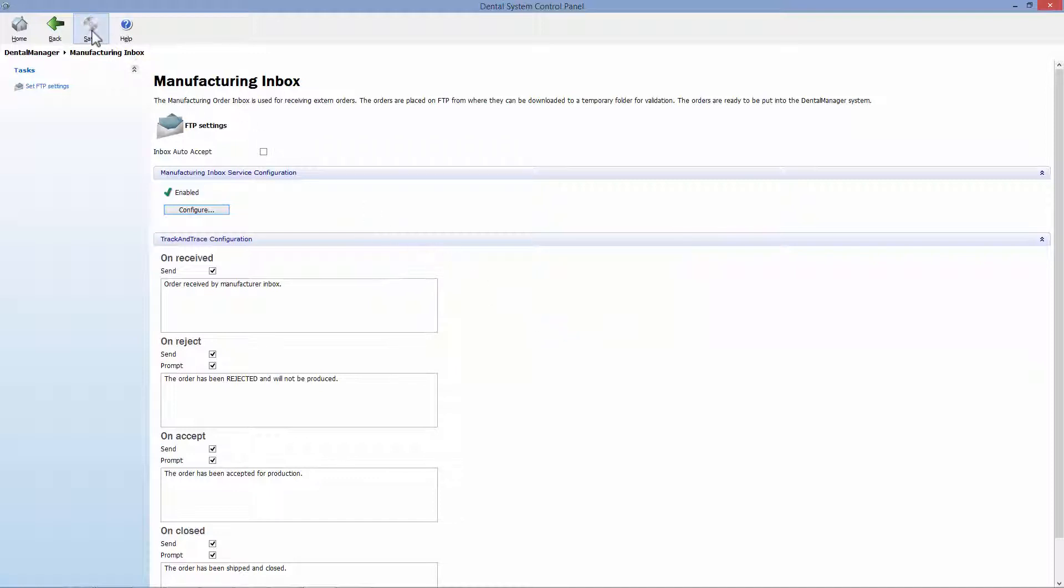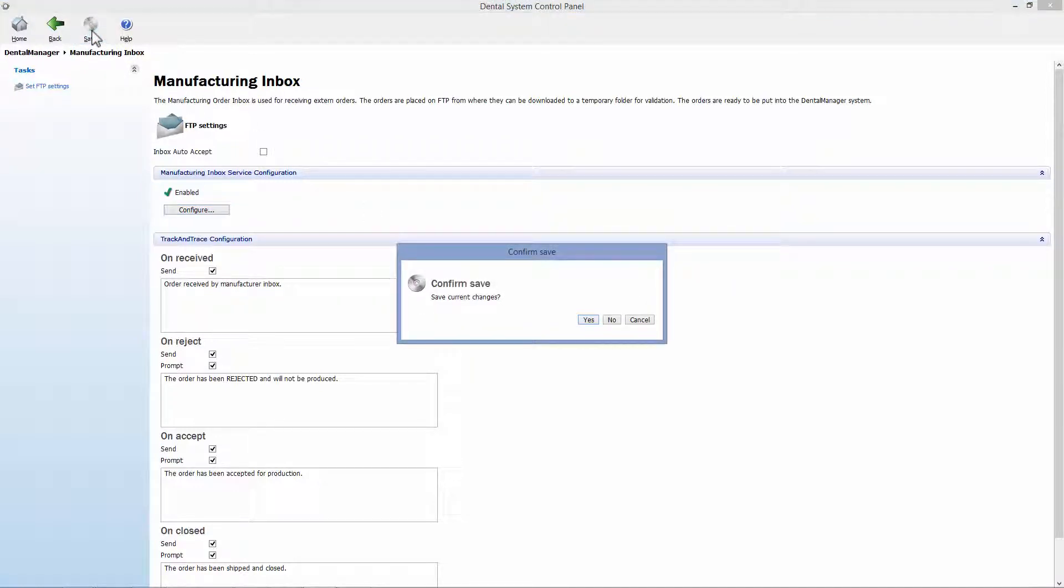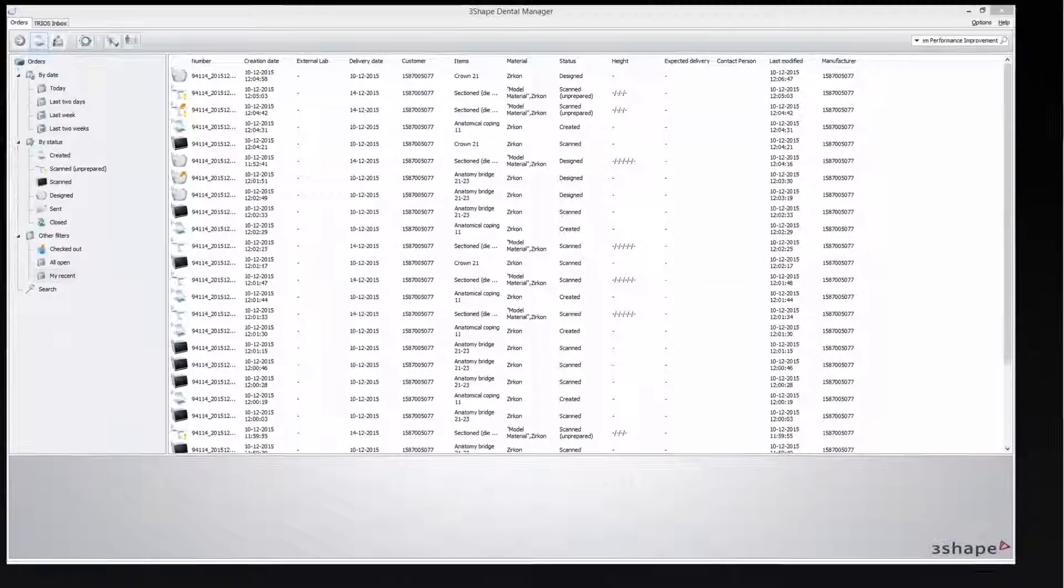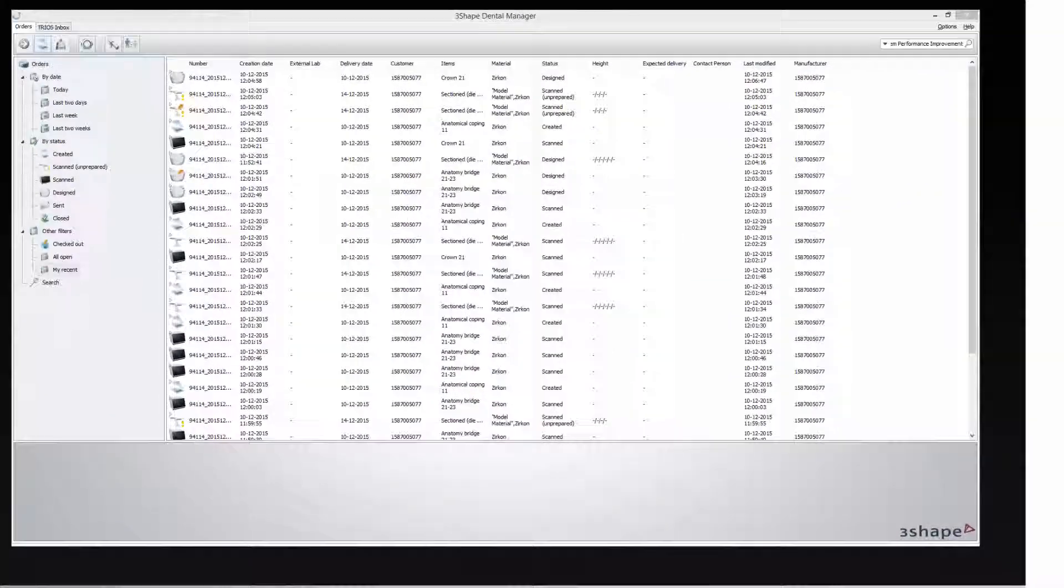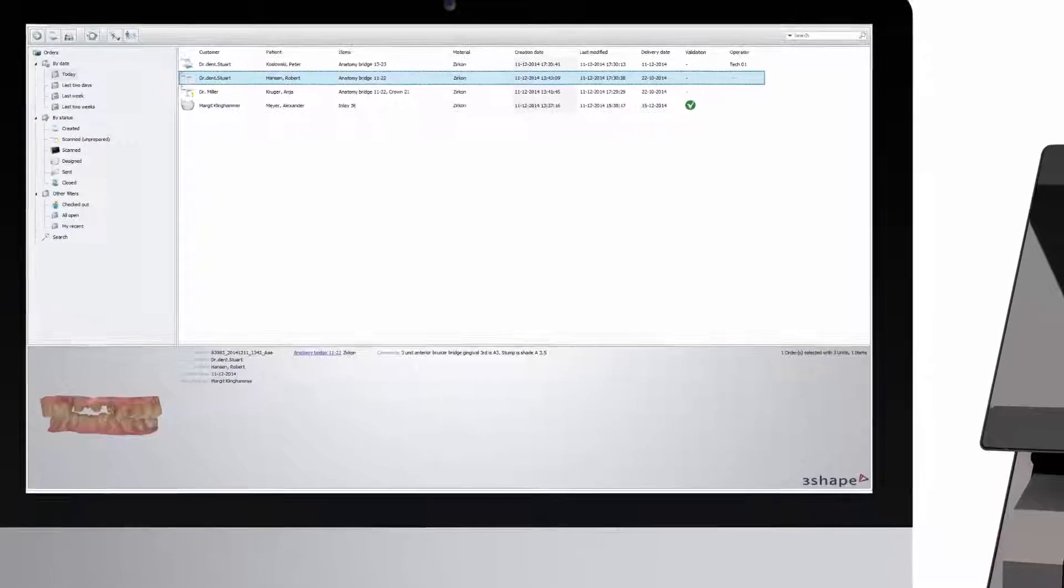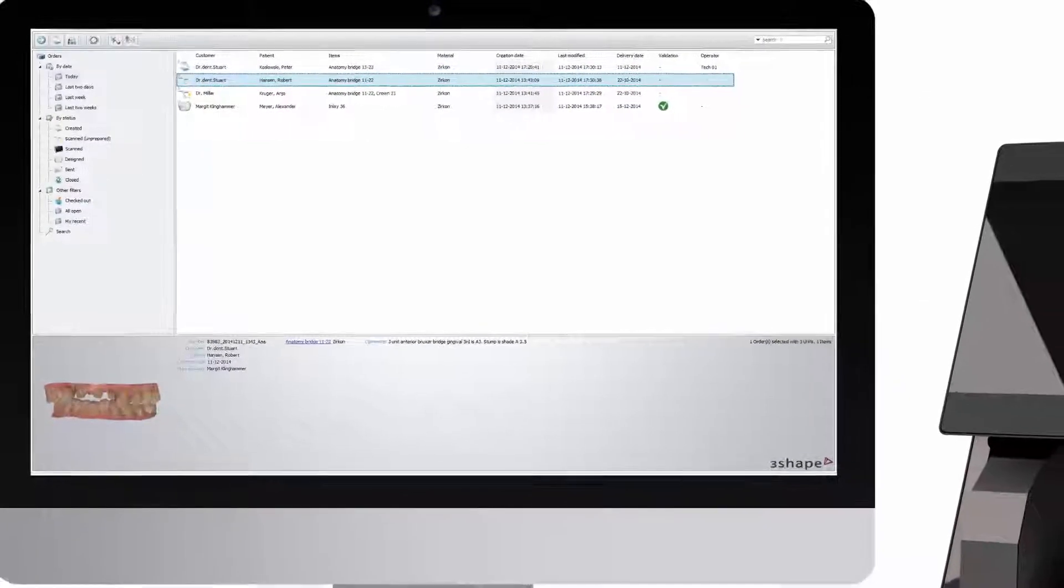After that, click save. Now you can continue to have a responsive dental manager without any slowing down.